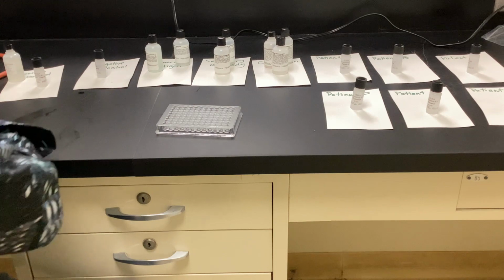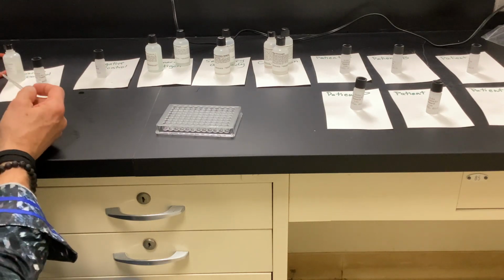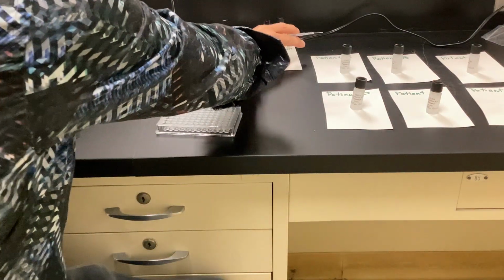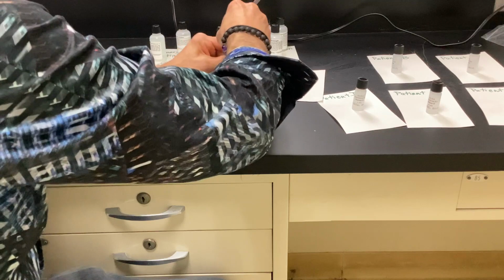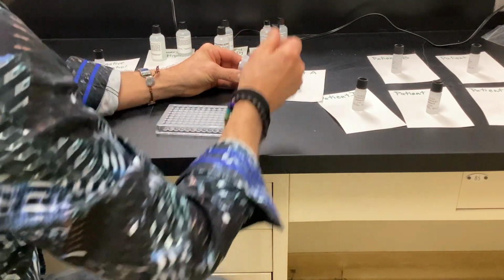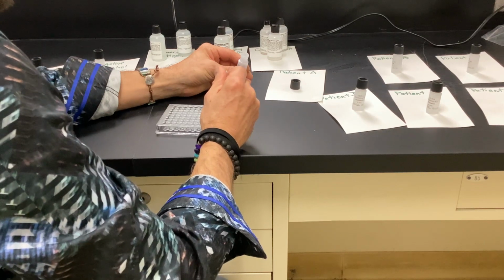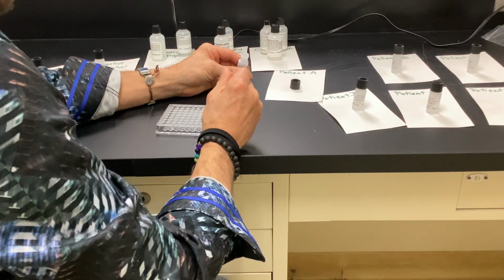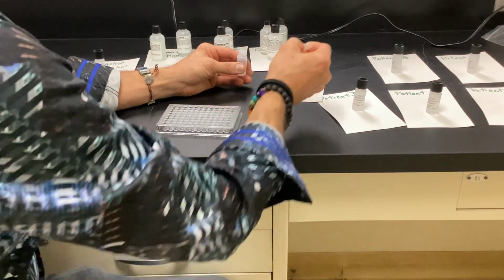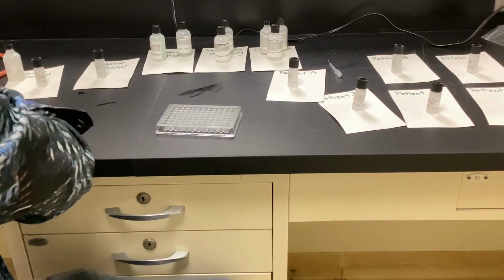All right, so the next one is going to be 3 drops of patient A, 7, 8, and 9. So patient A, and I'm going to do 3 for each. Why am I doing 3? To triple check. All right. Why am I asking these questions out loud? This is going to be on the practical. See how smart you are?